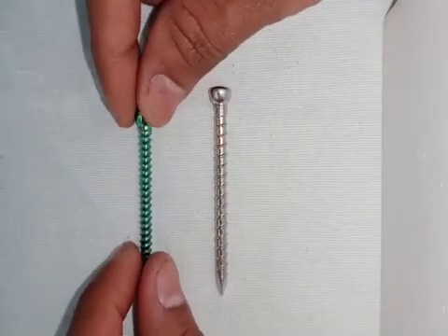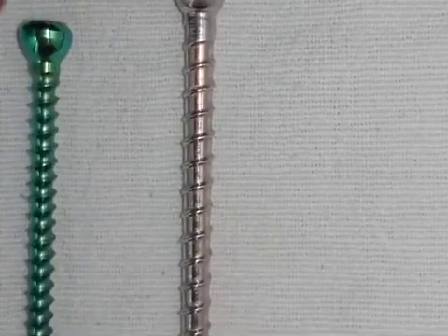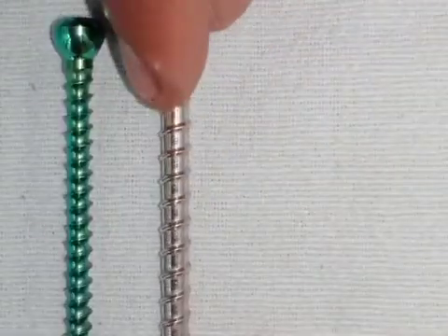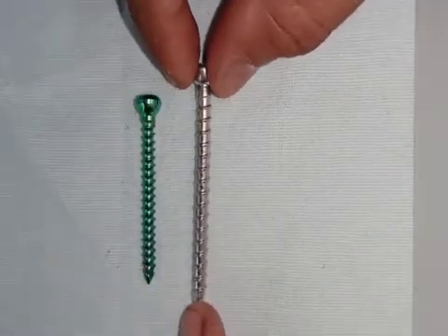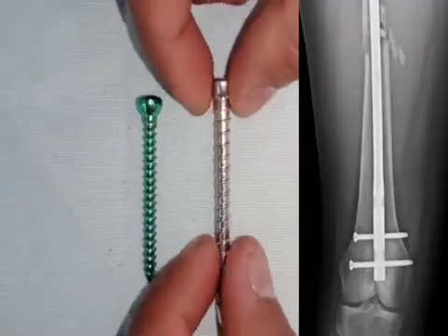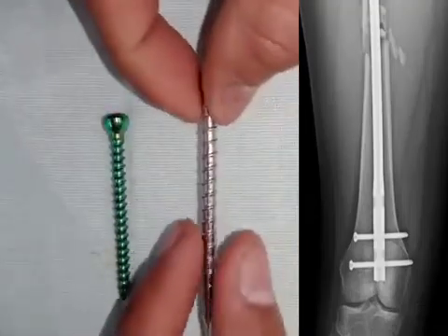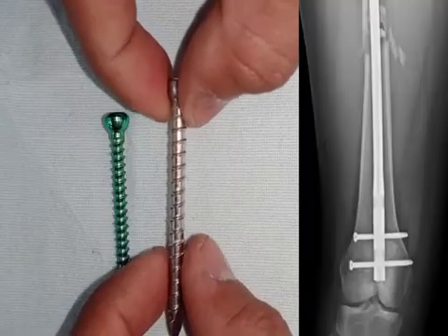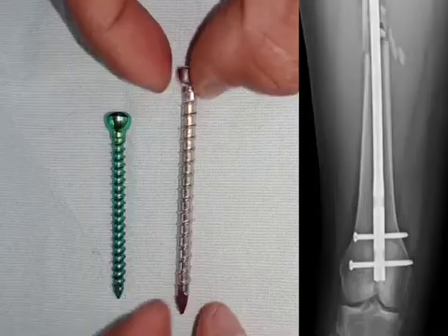Here is the titanium screw we saw — it is an ordinary cortical screw. Next to it is another screw. If you look at the threads in detail, you can see the cortical screw gives a minimum amount of purchase, and this other screw has a thread that barely sticks out. This screw is not even called a screw — it is called an interlocking bolt. The interlocking bolt does not function to prevent pullout. It is simply put through an interlocking nail to create locking, and it is very rare to have a force pulling out the screw. The threads are simply to help it be inserted through the nail.